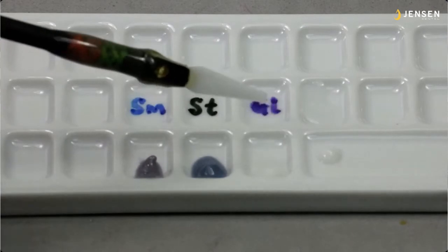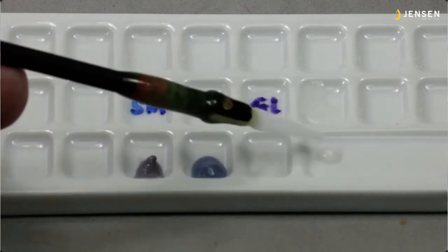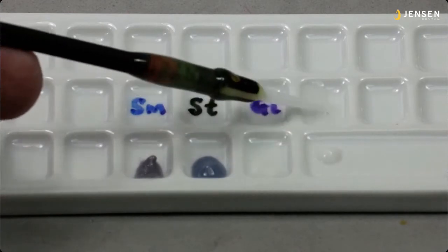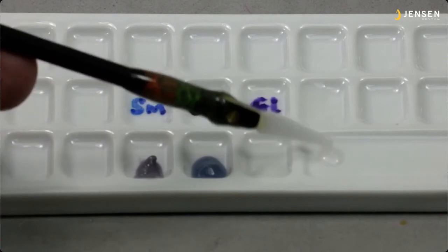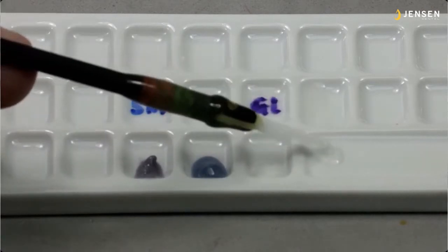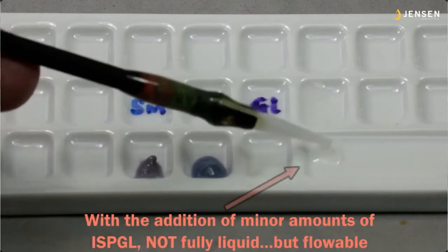You see how I pull my spatula up in its strings? With a little pile like that, you're going to have it string maybe about a quarter to a half an inch from the jar, maybe more than that. So I just dip the tip of my zirconia spatula into a little bit of liquid, and I just thin down that one pile a little bit more than the other.